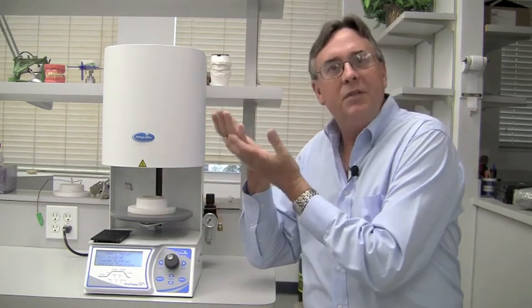On top of that there is a resistance spring on the plunger that compresses as the press continues. This also reduces the pressure even more so that the likelihood of getting a crack at the end of press, which is the one that ruins your pressings, is very, very unlikely with this furnace.